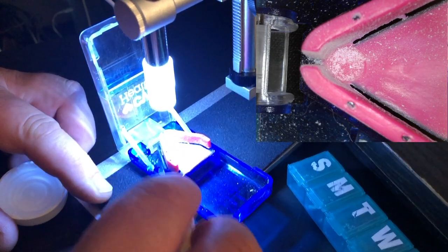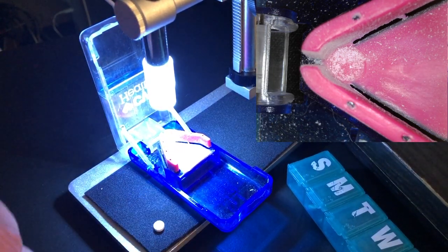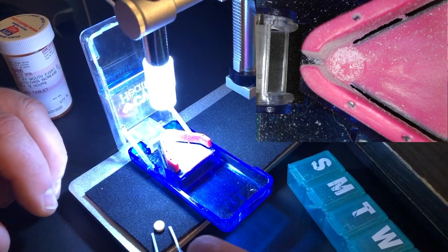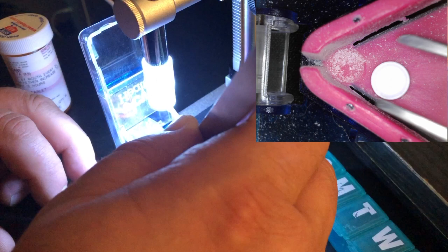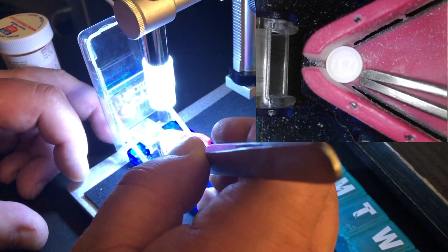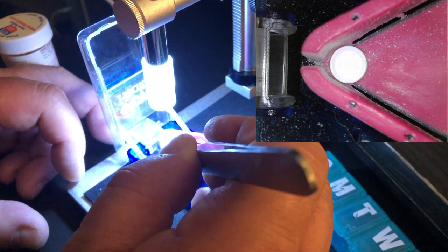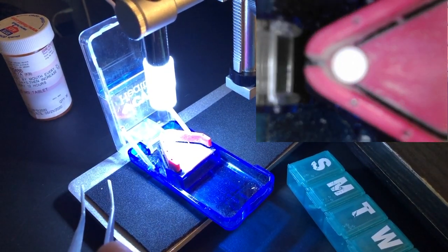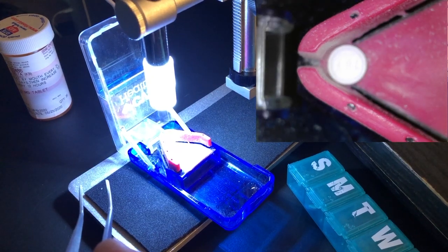Now, I'm going to show you a little trick or how I found this works the best. It's not 100% foolproof, but I made a large progress there. Let me show this to you, on this little pill there is a number on there, or a text, and I don't know how good you can see this. I'm going to try to focus a little.